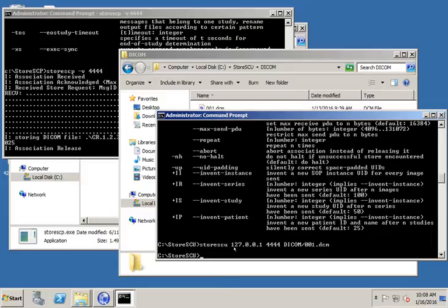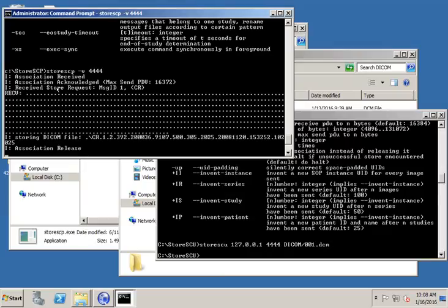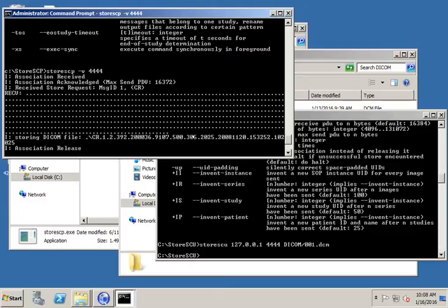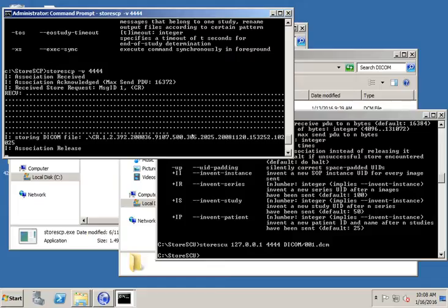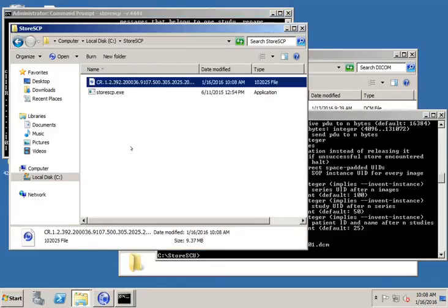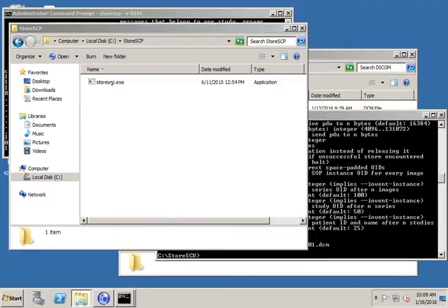We could put verbose mode on so we can see those messages. And on the left-hand side, you can see here where it received the association. All these little dots are the DICOM PDUs being received. And then it stored the DICOM file. So it shows us that it actually stored the file. The first two letters of the file name is the abstract syntax or the modality type that maps to the abstract syntax. And then all the other numbers are the UID for that particular image. So that's the image instance UID. So there's my image file sitting here on this side. So it was received by storeSCP. I'm going to go ahead and delete that file since we don't need it.